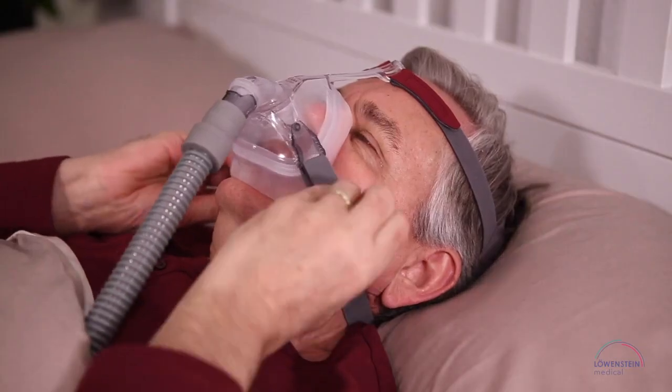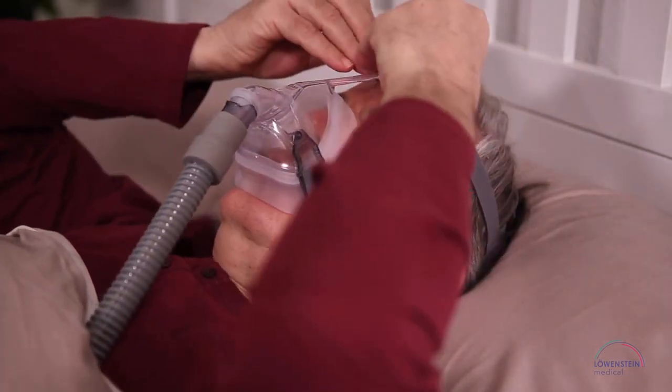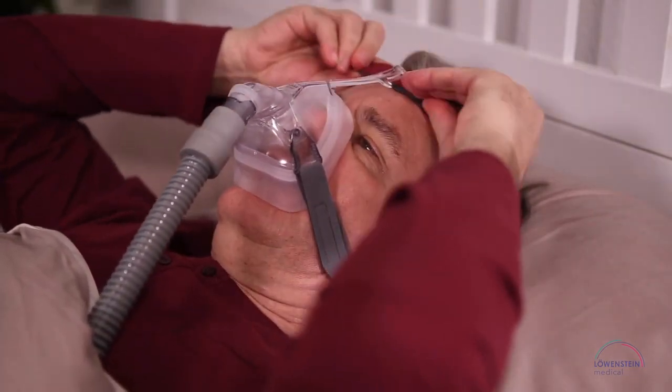If the mask leaks or exerts pressure on your face while you're lying down, readjust the headgear as described above.